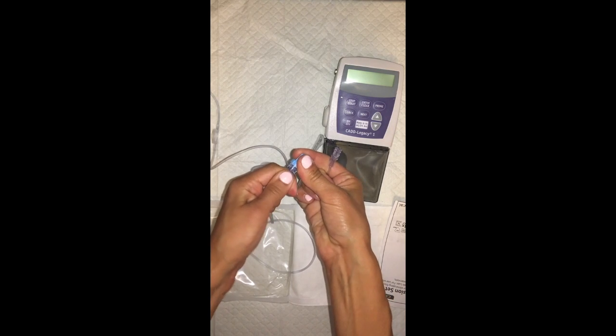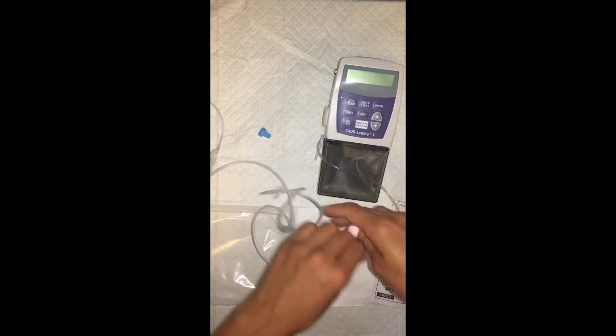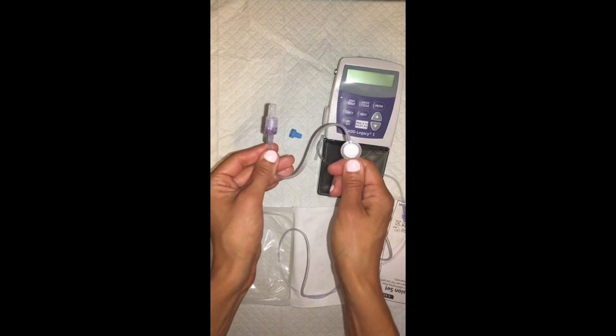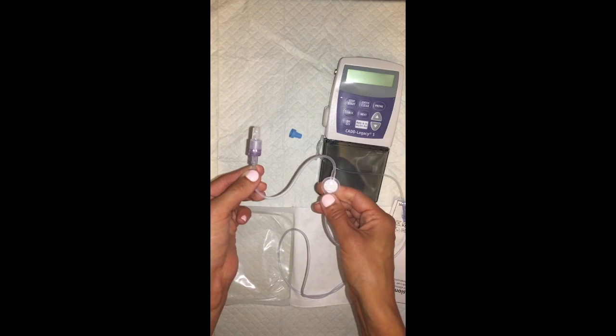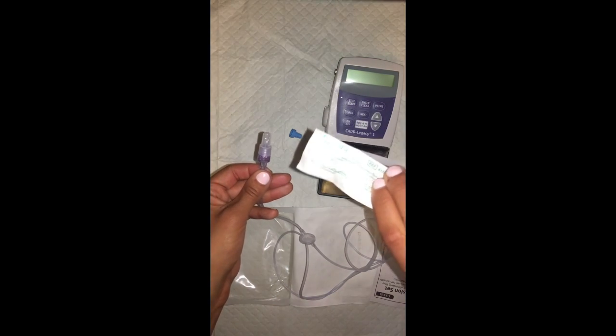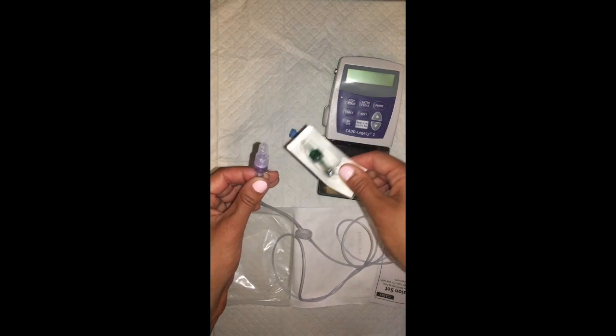You're going to disconnect the blue cap and screw this into place. Then on the further end here, again, the filter closest to the patient's side, you're going to grab your backflow cap. And these are green, which is unlike any of our other caps, which is nice because it's distinctive.